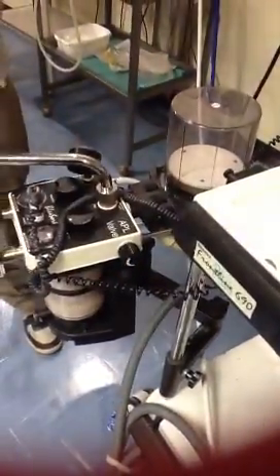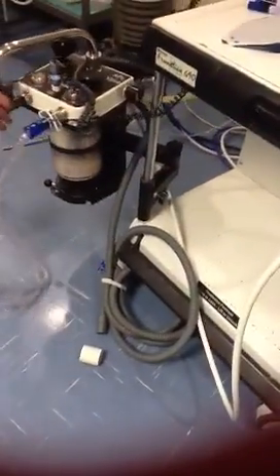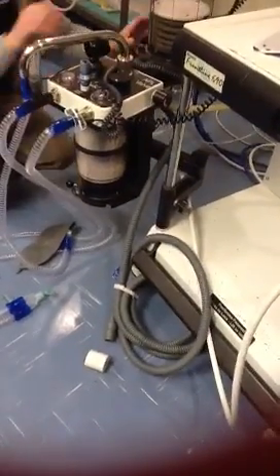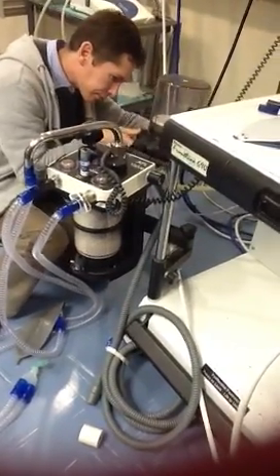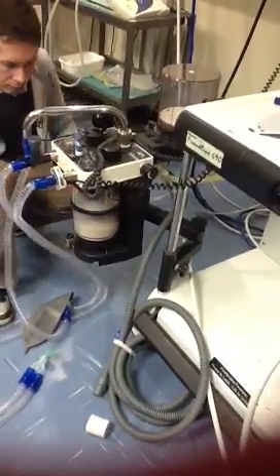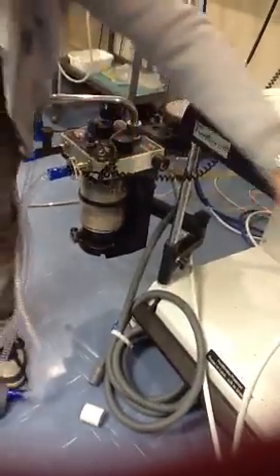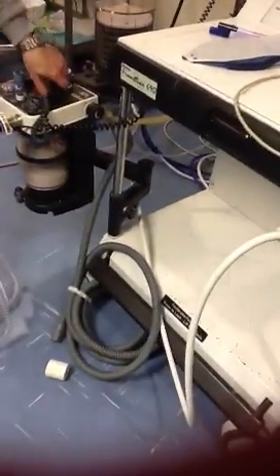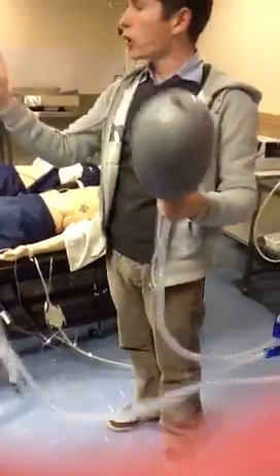So you close your fresh gas flows or your flow meter, you close your APL valve completely, and then you use your oxygen flush to fill your reservoir bag, while you're closing the patient side. What you're also testing is that your oxygen flush is working properly.